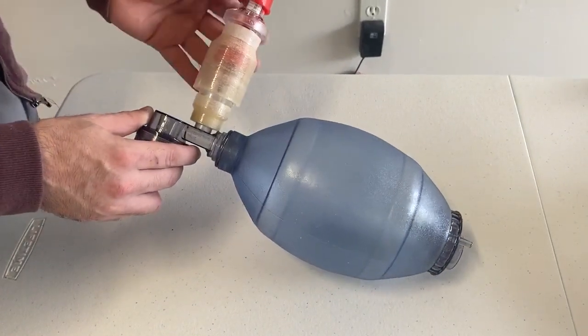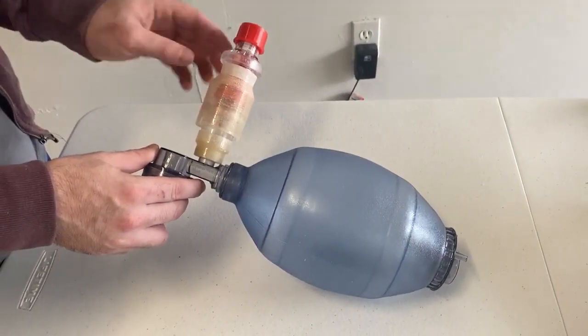In this video we're going to show how you can create an adjustable pressure relief valve up to 40 centimeters of water.